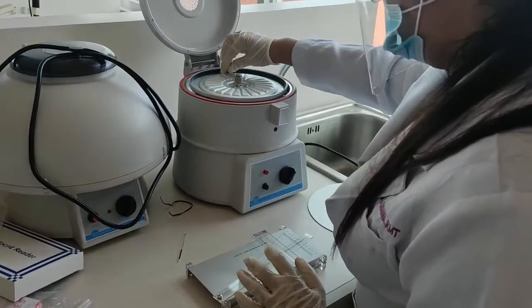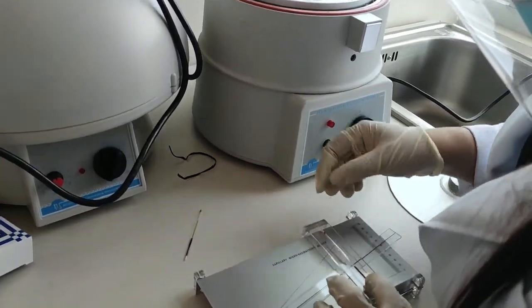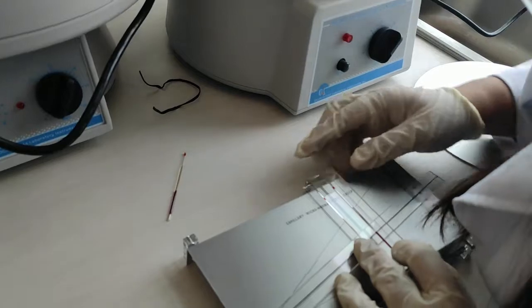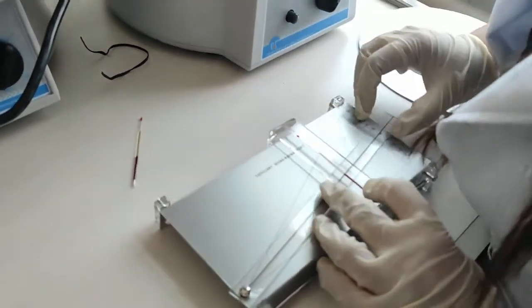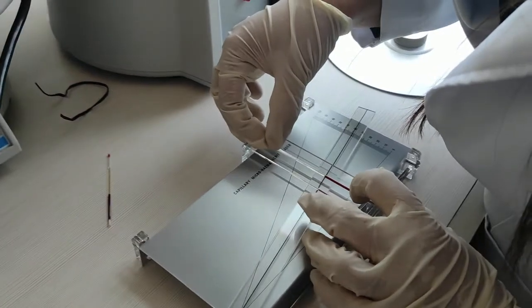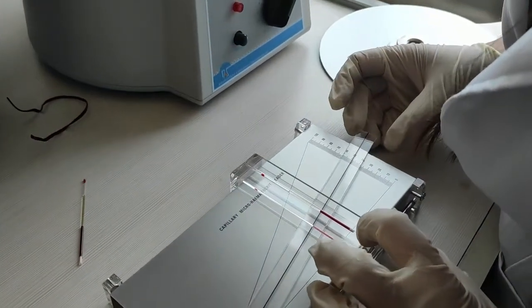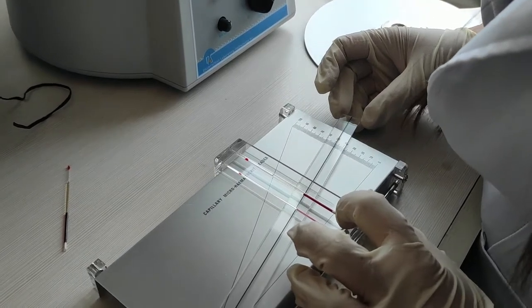So as summary, first we will collect our sample. Then after we collect our sample, we will seal our capillary tube and centrifuge it using a microhematocrit centrifuge for 10 minutes. And after that, we will use a microhematocrit reader to check for our sample reading.